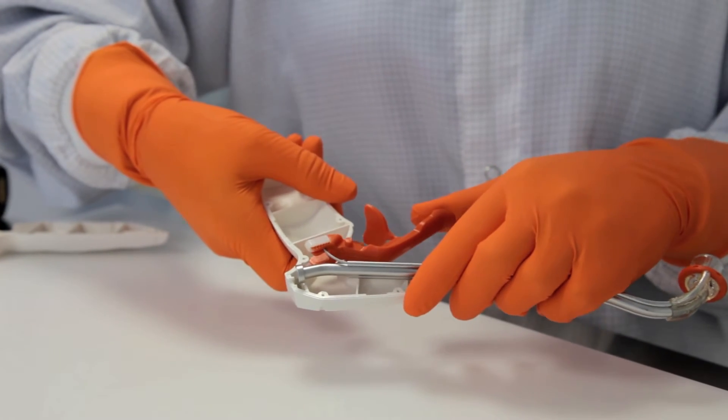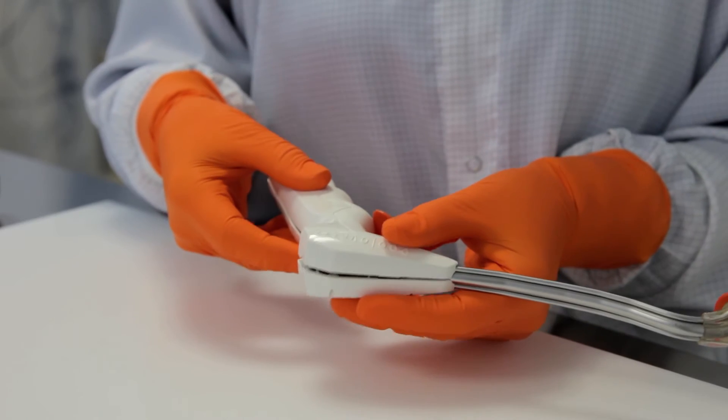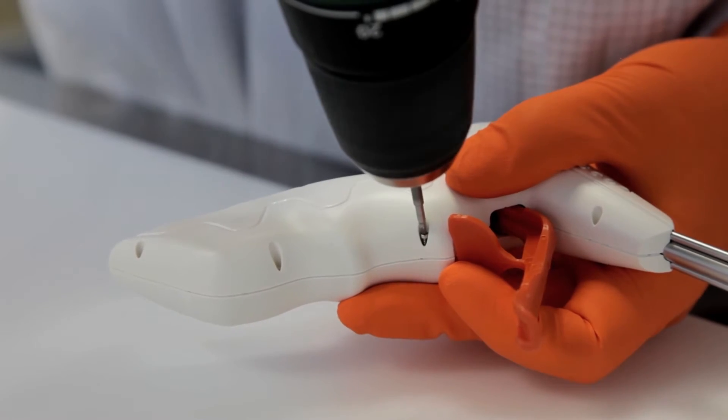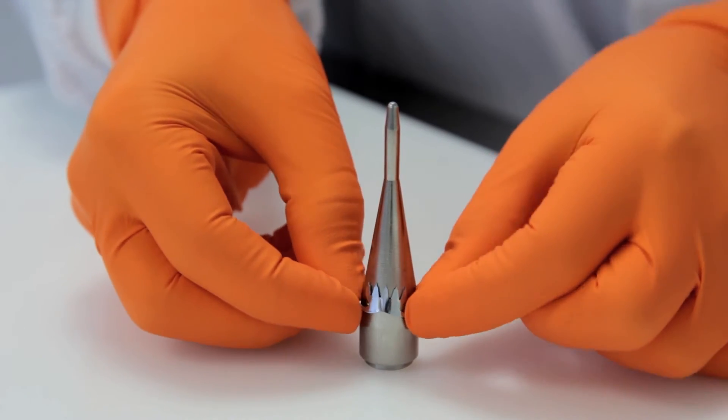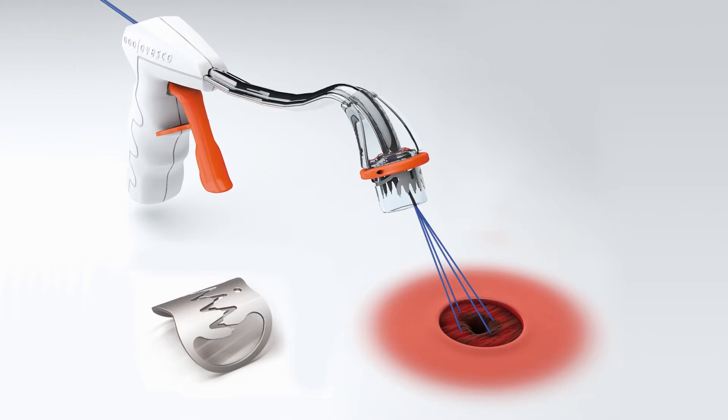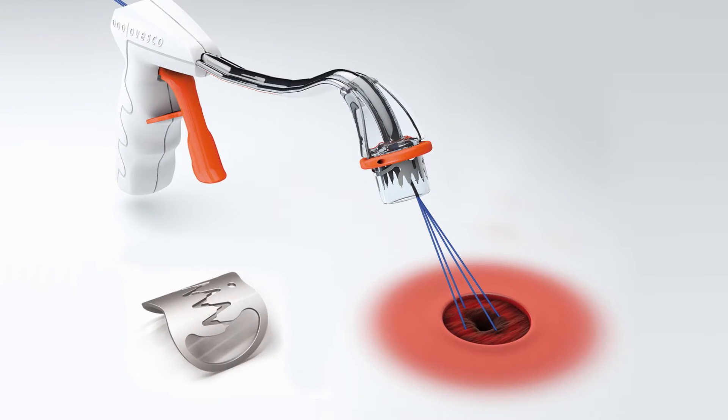A new development is the OTSC Proctology System, designed for the surgical treatment of complex fistulas of the rectum. The clip provides effective sealing of the internal fistula opening.